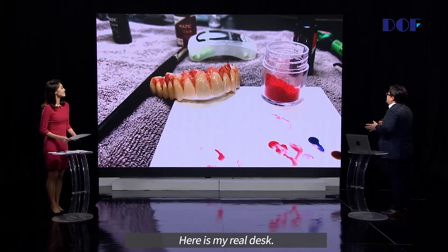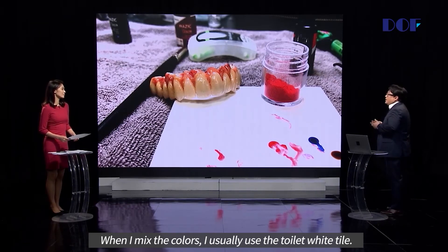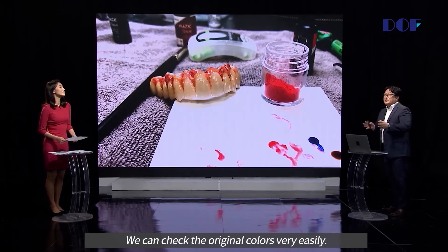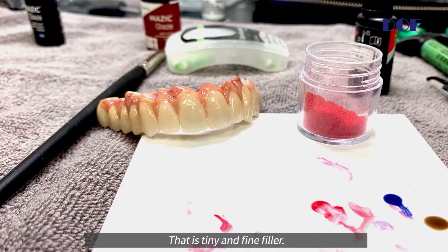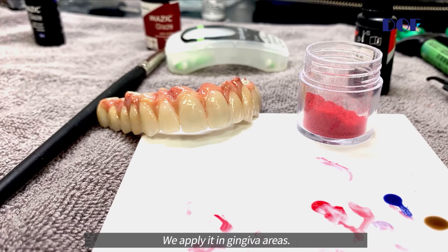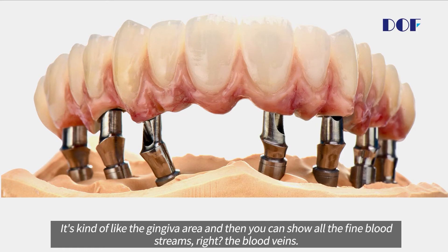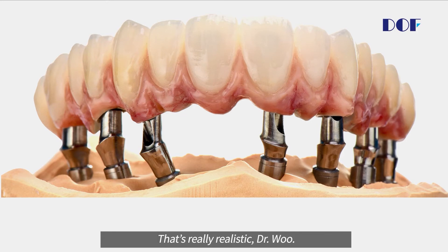Here is my real desk. When I'm mixing the color, I usually use a white tile — it's very useful for checking the original color. That pink material is a tiny, fine filler applied in the gingival area. It's like the gingival area, and you can show all the fine blood streams — the blood veins that run through it. Wow, that's very realistic, Doctor.